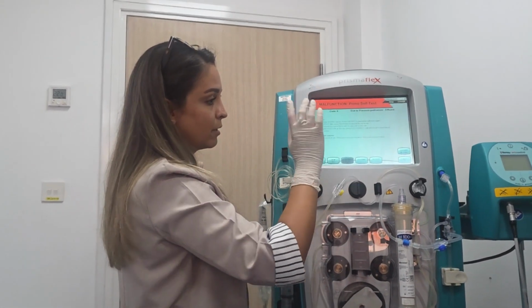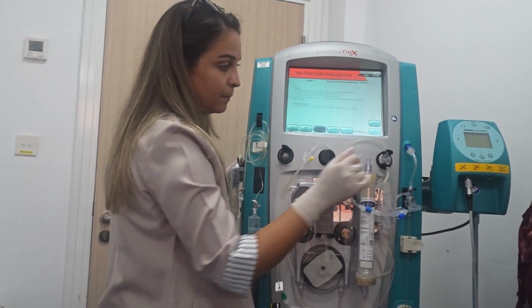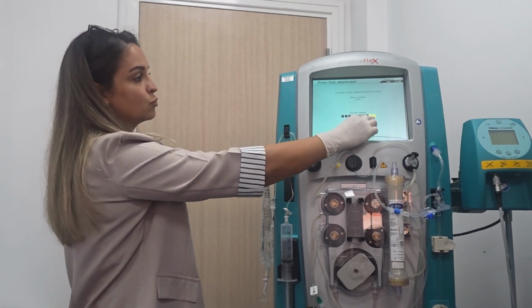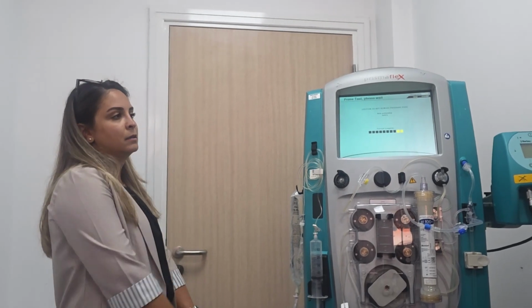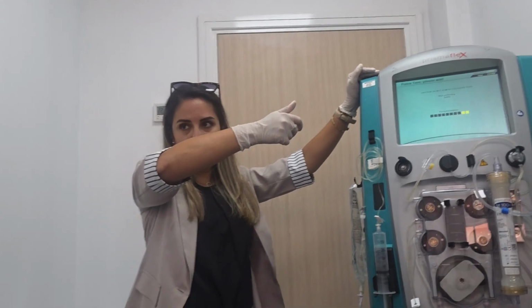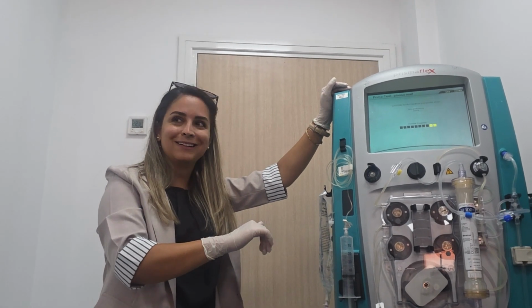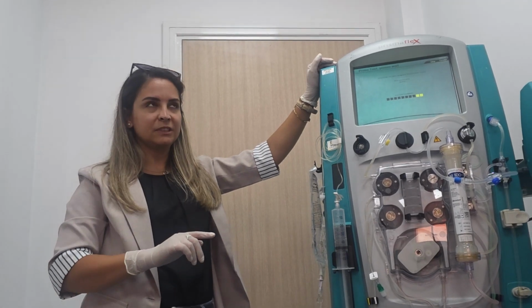Press retest. Okay. I will just remove it. Retest. I will check if it's inserted well. Then I will press retest. So it will repeat only the last 2 parts of the test. We're just trying cleaning, to check the positioning of the pressure probe. I remove it, I put it back. I do reprime, I repeat the priming. Sometimes I just turn off the machine, then I turn it on. Then we have to remove everything and reprime. No need. Zero, no?